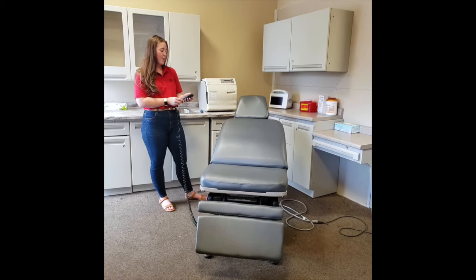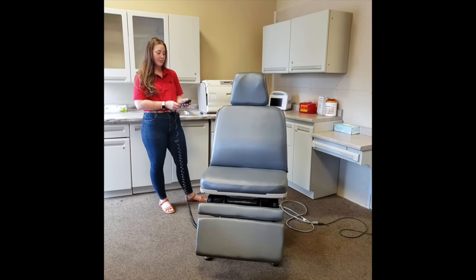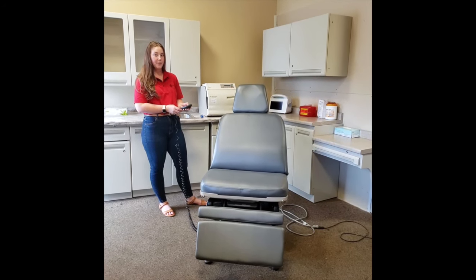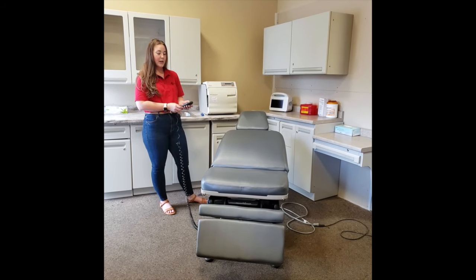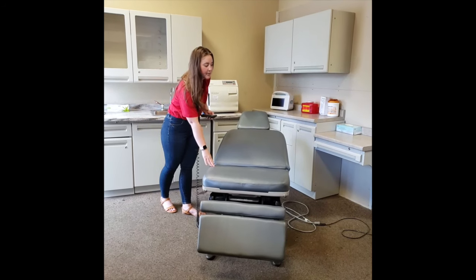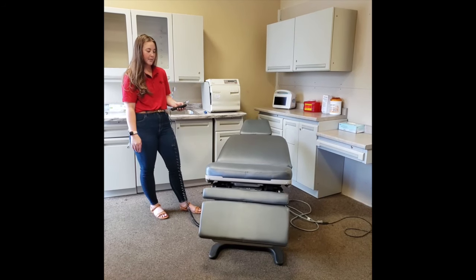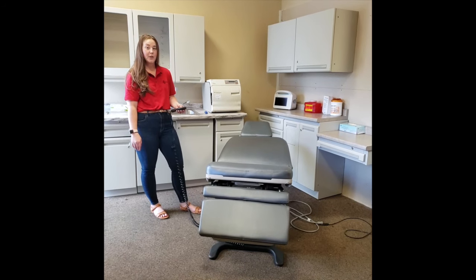You'll see that there is a forward button for your back panel, as well as the recline button that is right below. And then we can adjust our seating pad here to recline the chair back, as well as bring the chair forward.